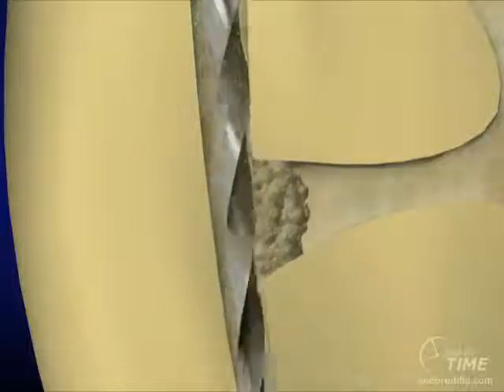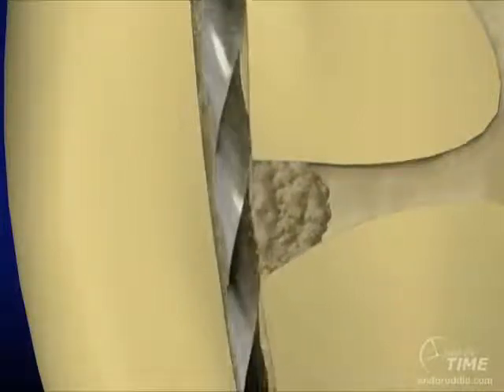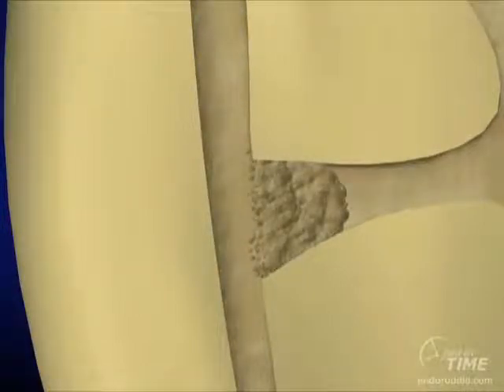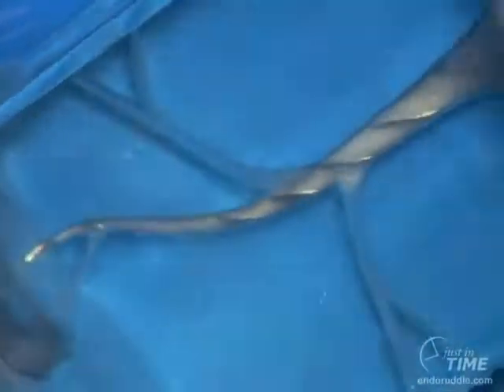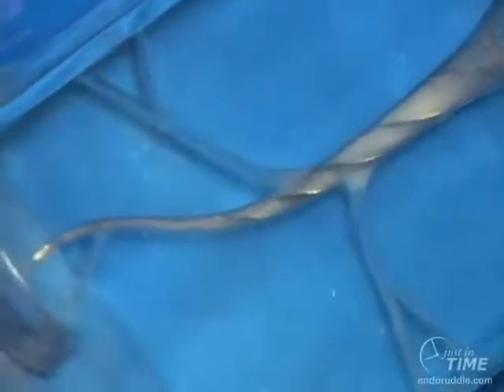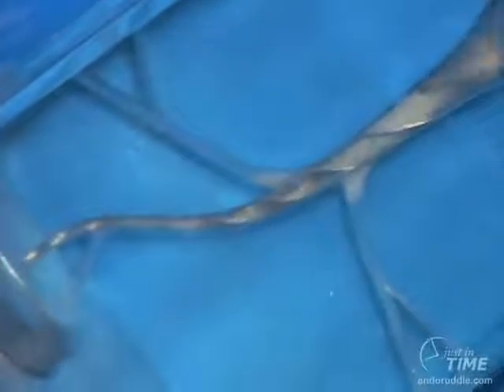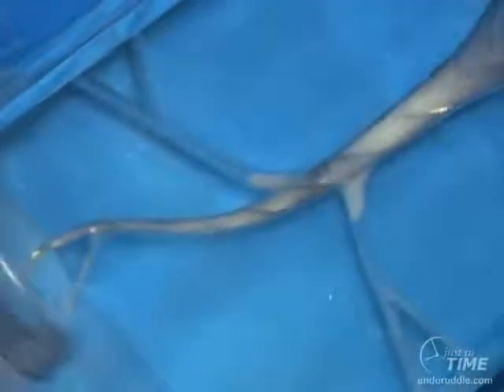Instruments that shape canals commonly spin debris off into tubules, eccentricities off the rounder parts of canals, and into anastomoses. In a simulated plastic block, you can see exactly how this works, and every rotation of the instrument just provides deeper penetration of the dental mud.